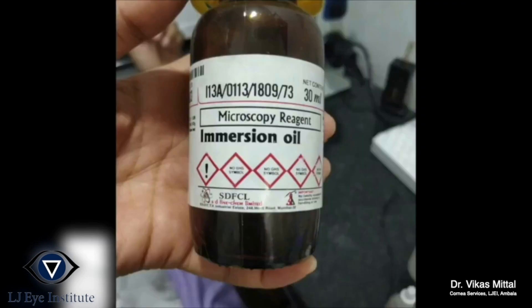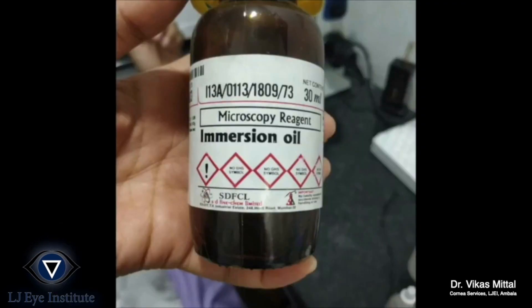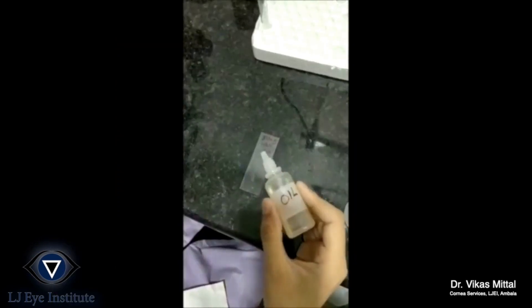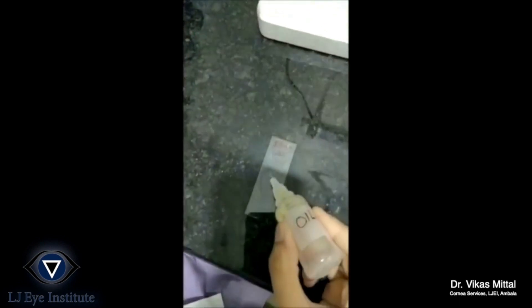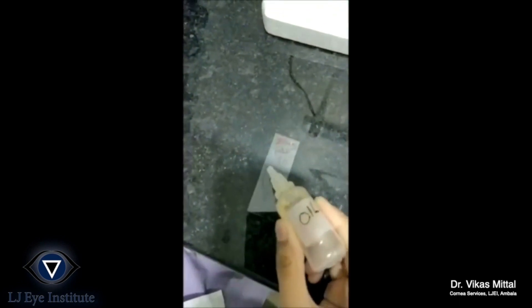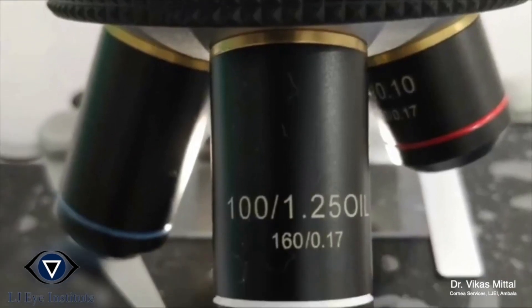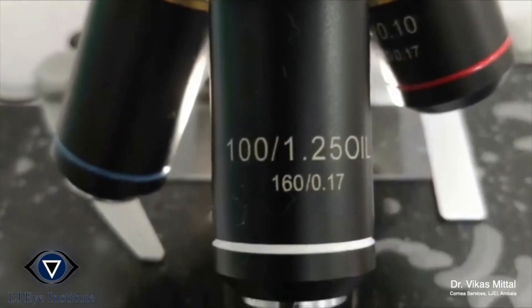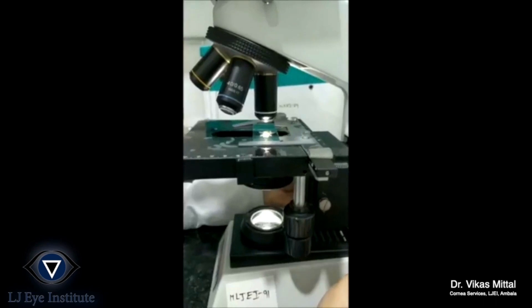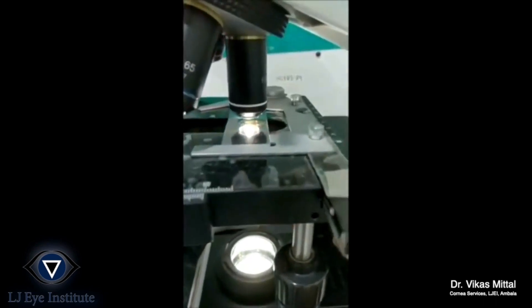This is the immersion oil used for the 100x oil immersion technique. A few drops of oil are instilled on the gram staining slide, and it is viewed using the 100x oil immersion technique. The slide is focused on the microscope as being shown.